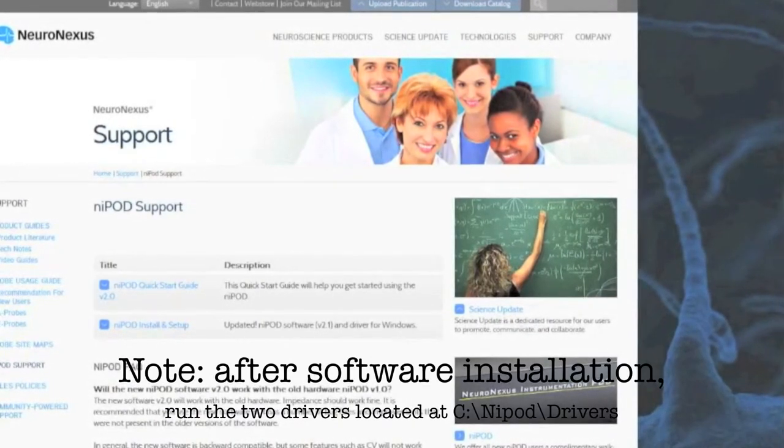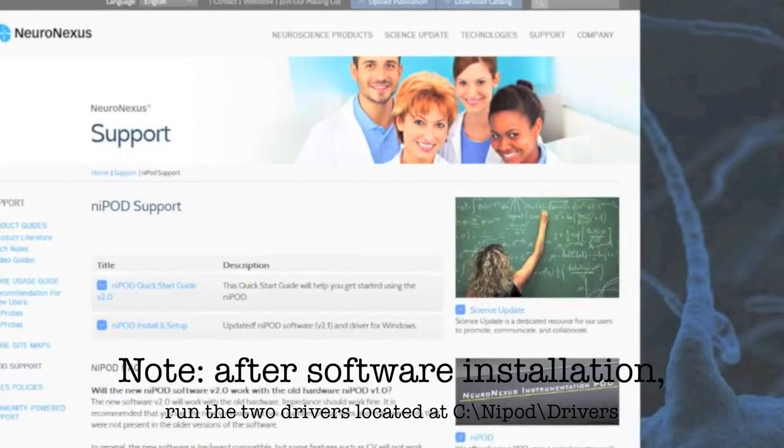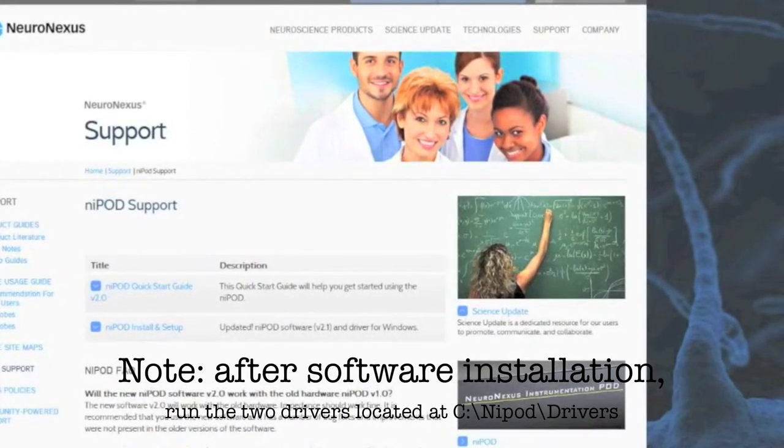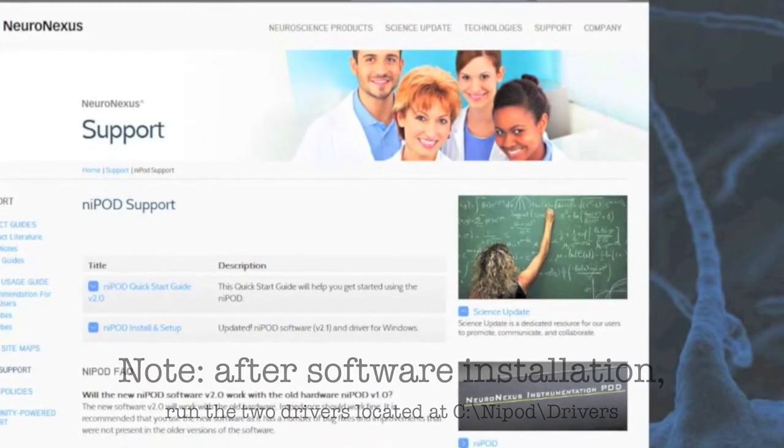To download the software and drivers, select Nipod install and setup. You will need to do this before using the application for the first time. Refer to the quick start guide for questions on this and any other problems.